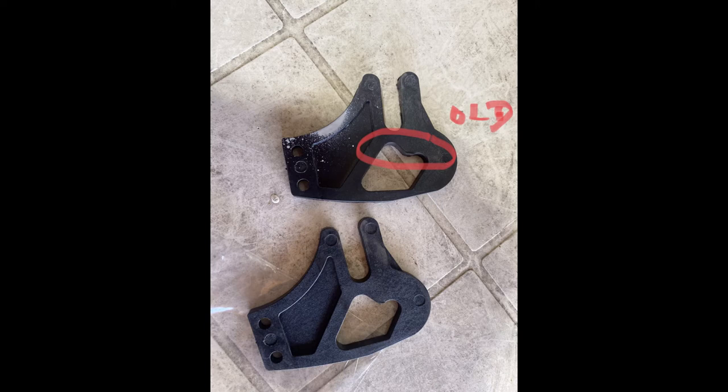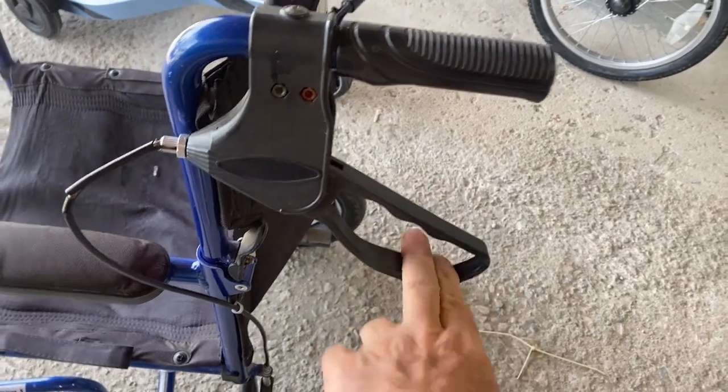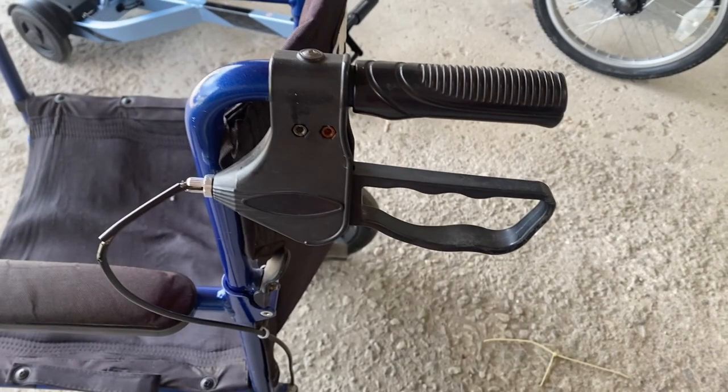On the bottom I used a parts unit that I had in stock and swapped out that bottom piece. Let's see how it locks. There you go. I'm not saying that'll be the problem every time, but swapping out that piece solved the problem this time.